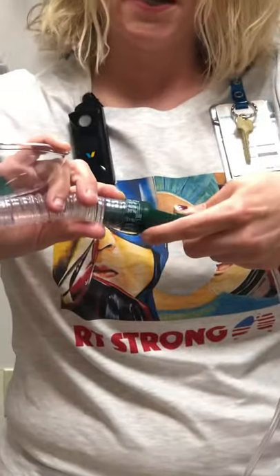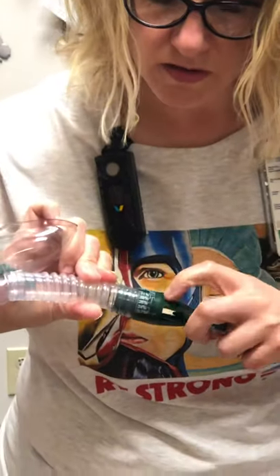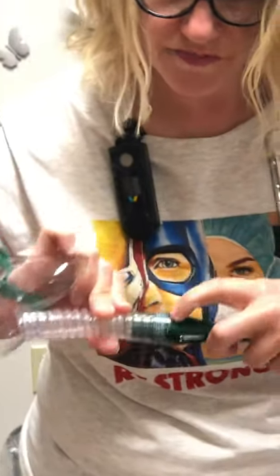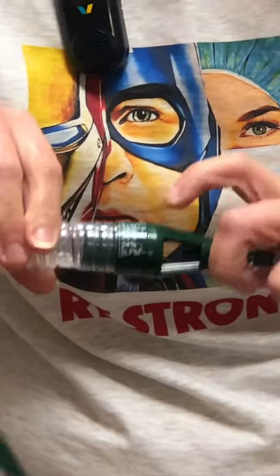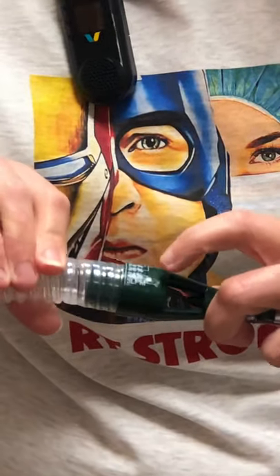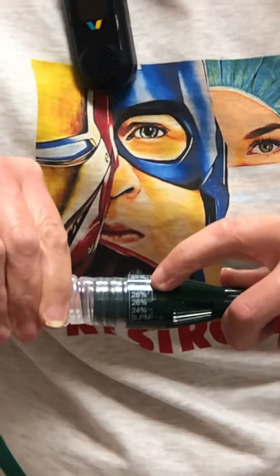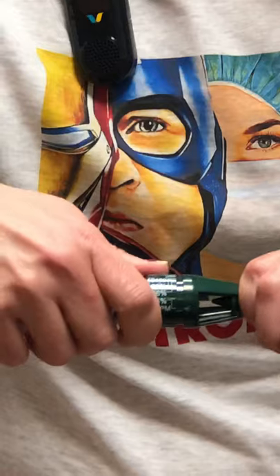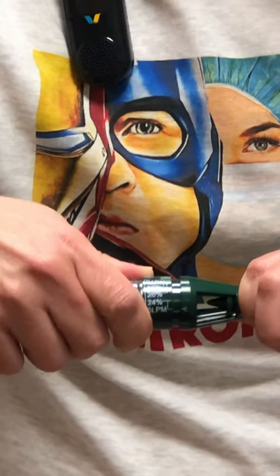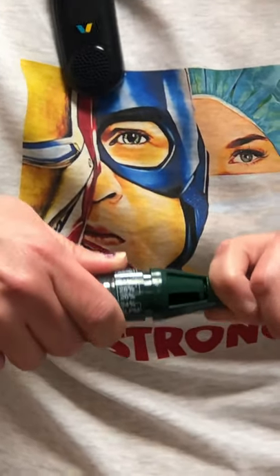There are different oxygen percentages with the liter flow. So 35 to 50% is run at 6 liters, and 24 to 31% is run at 3 liters. You pull them apart and then line the arrow up with whatever percentage you're looking for.